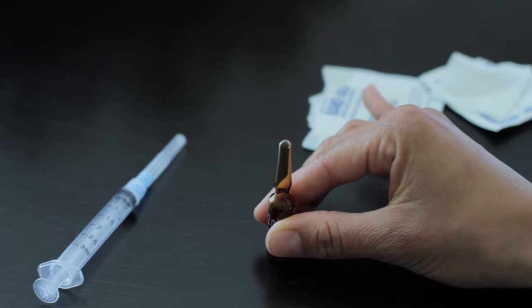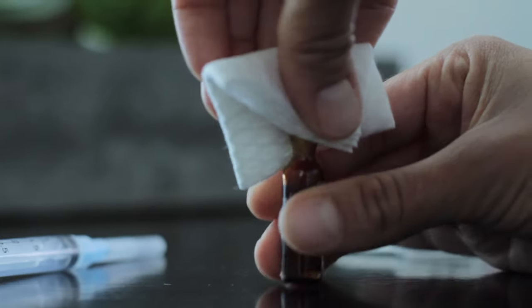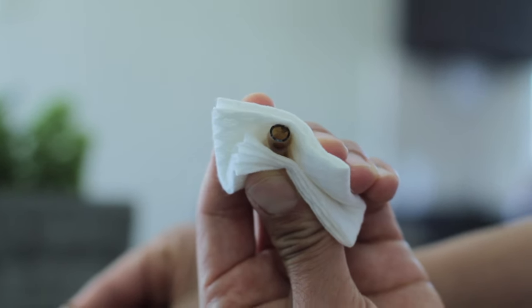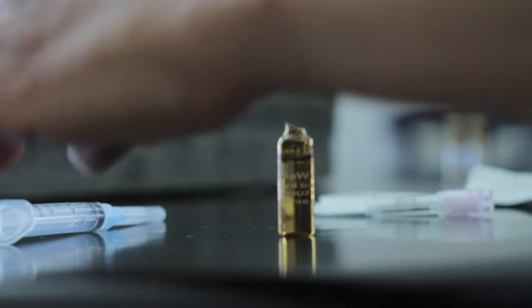So let's put that down. With your non-dominant hand, you are going to grab the two by two and you're going to snap it away from you. Just an easy snap, and there you go. And you dispose of that in the sharps container.